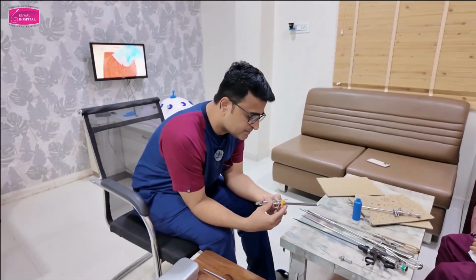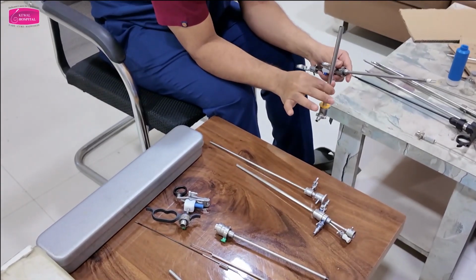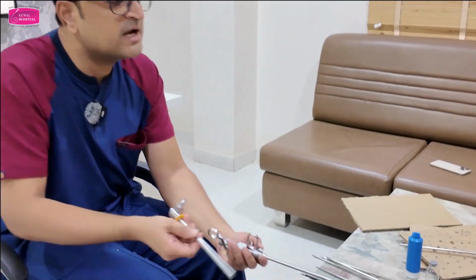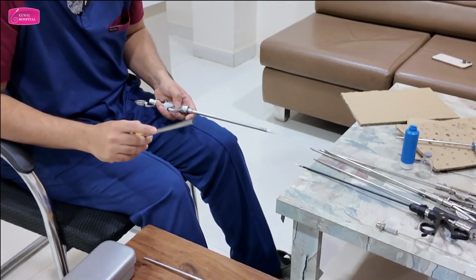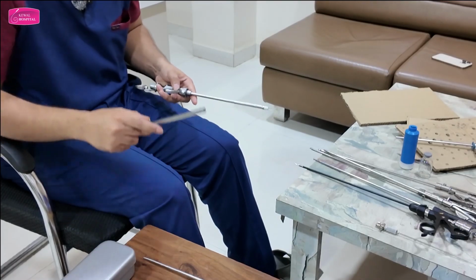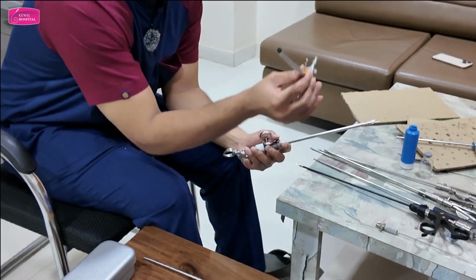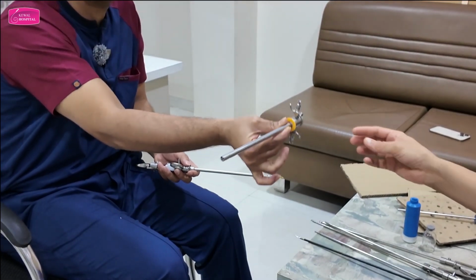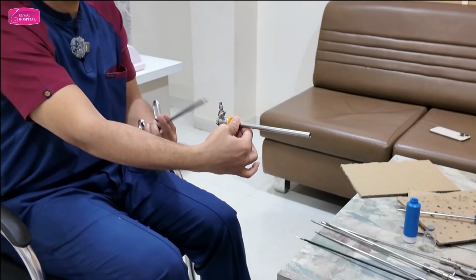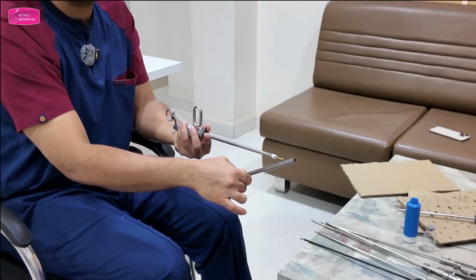Now I will show you about this also. Again, same. Just understand the instrument first, then I will tell you the differences between the two. This is slightly larger than this one. Resectoscopes come in different sizes, ranging from 16 French to 26 French. This is the 18 French one, and this is 26 French. So this is smaller, this is larger. Again, the outer sheath has both inflow and outflow. Which is inflow, which is outflow? Yeah, arrow, but the closer one is inflow. If you hold it like this, the one close to you is always inflow. Away is outflow. And then there are arrows and everything. Again there are a series of holes here.